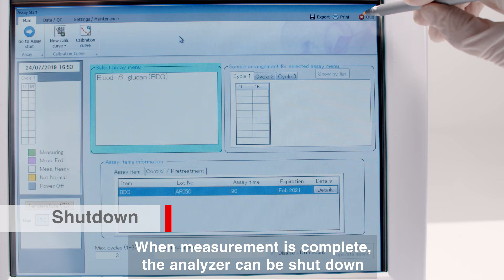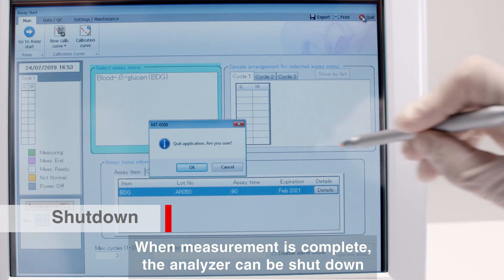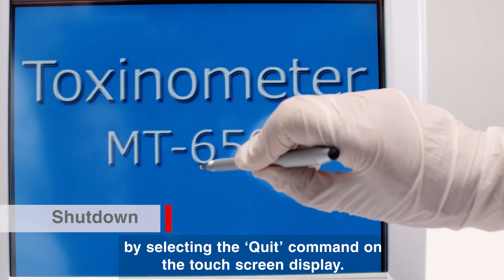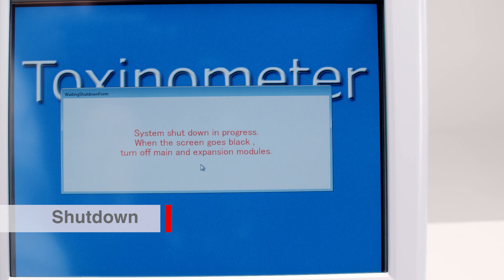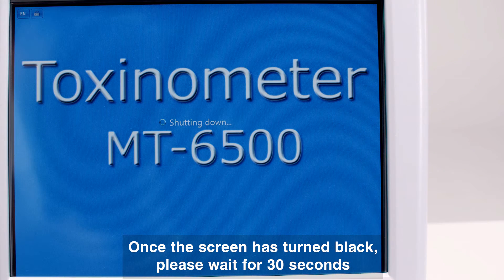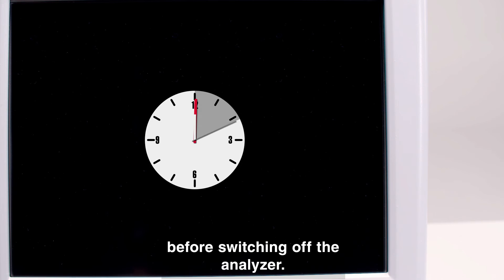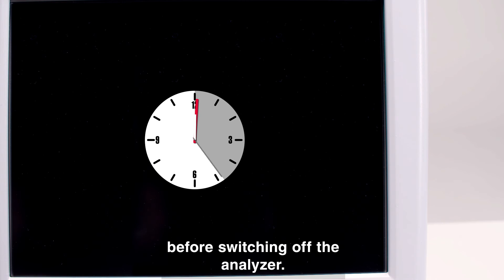When measurement is complete, the analyzer can be shut down by selecting the quit command on the touch screen display. Once the screen has turned black, please wait for 30 seconds before switching off the analyzer.